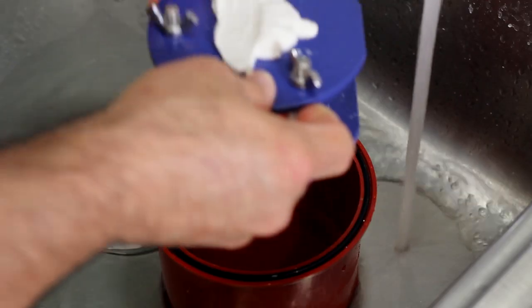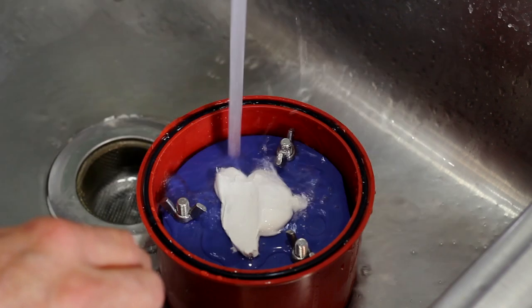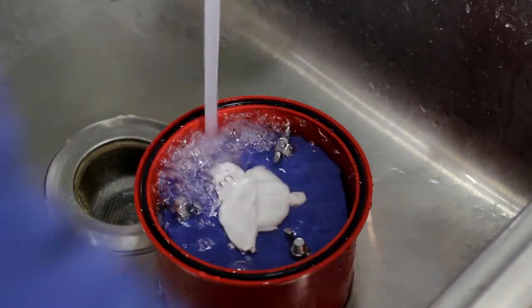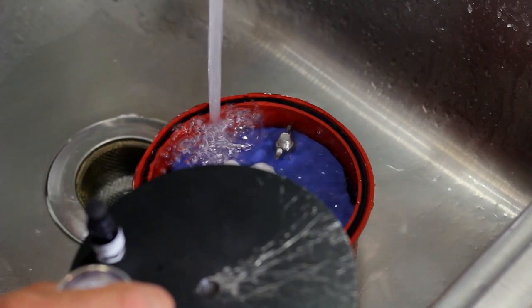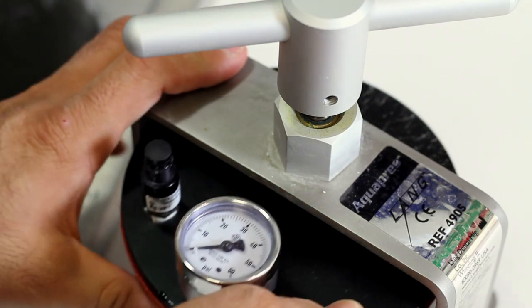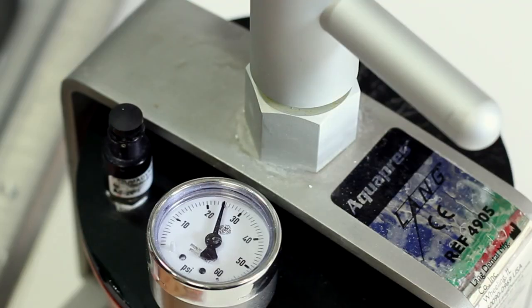Place the clamp jig into Lange's Aquapress. Fill and overfill the Aquapress with lukewarm water no hotter than 100 degrees Fahrenheit or 38 degrees Celsius. Tighten down the Aquapress to 25 PSI. Allow a minimum of 10 minutes in the press for full curing.